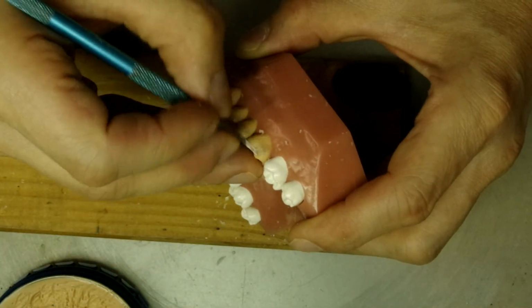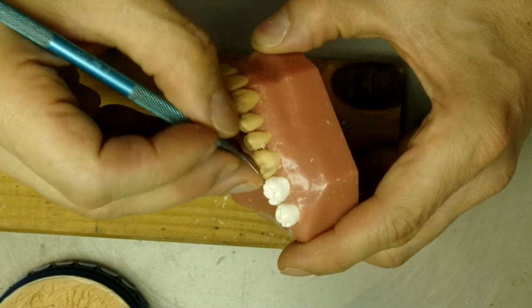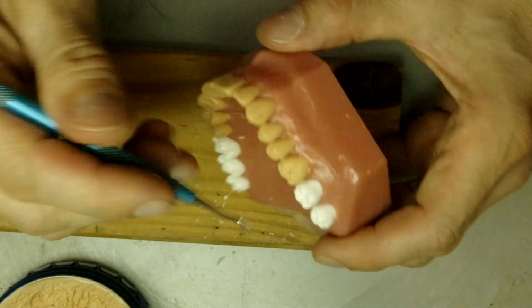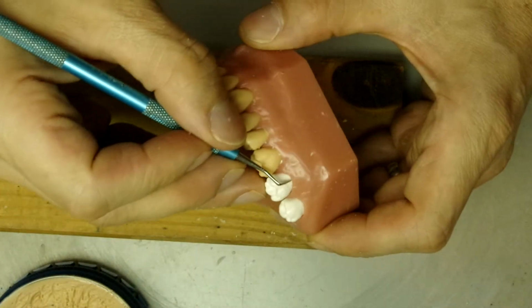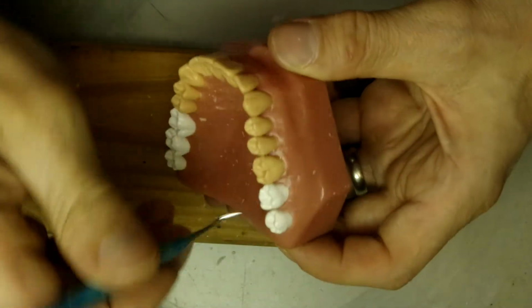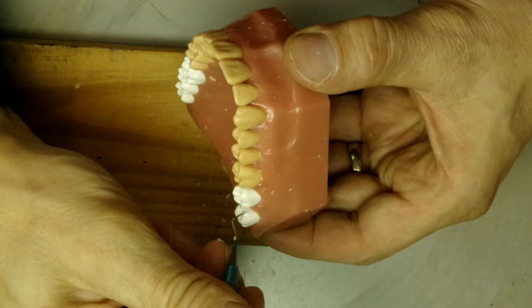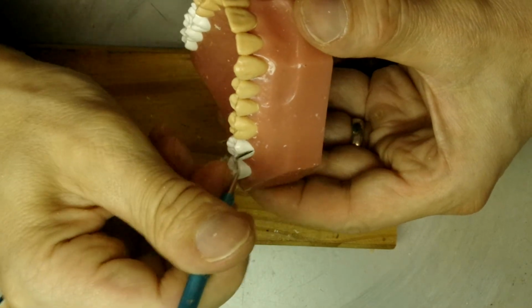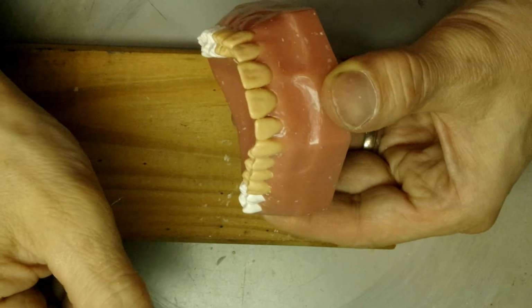Just make sure you don't make it too straight, because like I said before, too straight is no good and too bulky is no good. Like these teeth here, these are too straight, because if you notice, the emergence profile doesn't come out enough. So if this patient will start chewing, the food will get packed right into the gum, and we don't need that.